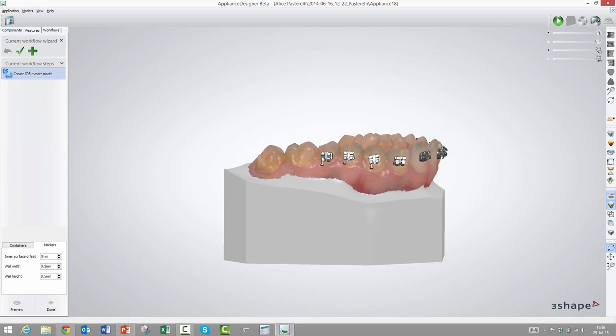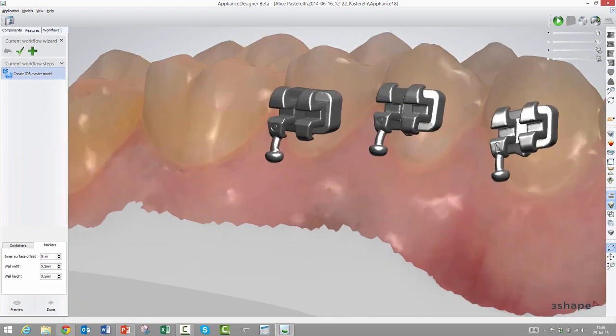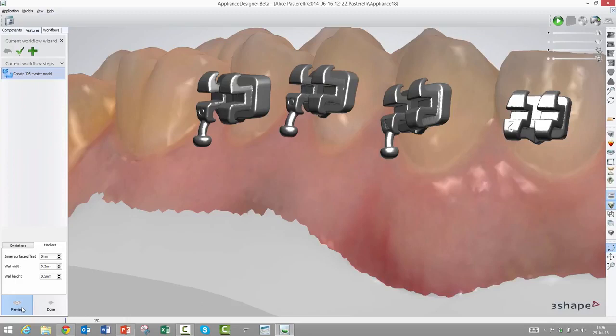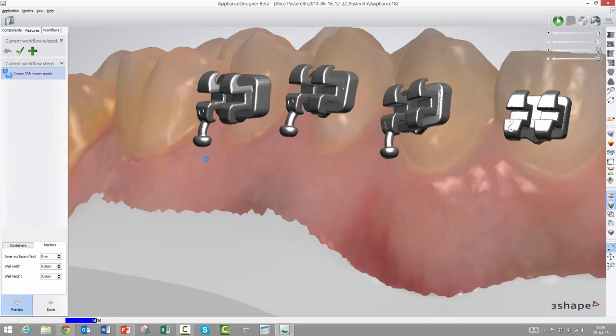The idea is here that we will print the model as seen here, but without the brackets. Instead, there will be these tiny walls where the real bracket should be placed before we do the vacuum pressing. We will then still, of course, need to protect the hooks and wings like you usually do in the real-life workflow once this has been printed. So I'll start the generation of these while we talk about the parameters that we have that can help us with the production equipment and materials.